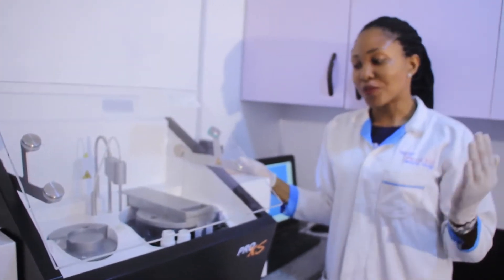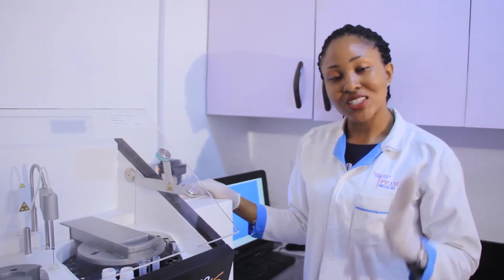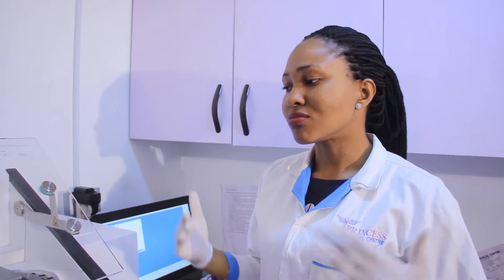Today's topic is on the five important components of the Selectra. These are components that we talk about day-to-day with our colleagues on the maintenance team. It's very important for us to know their functions.